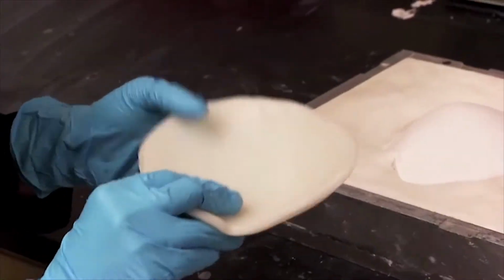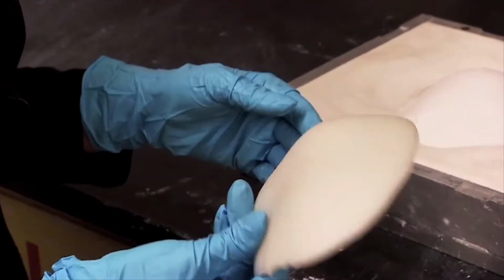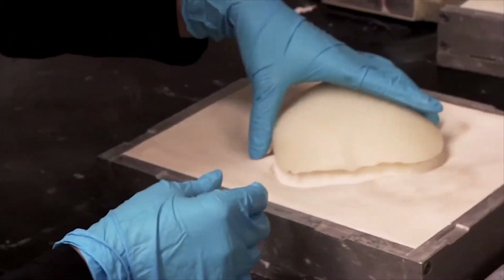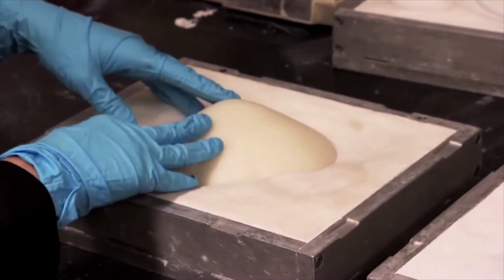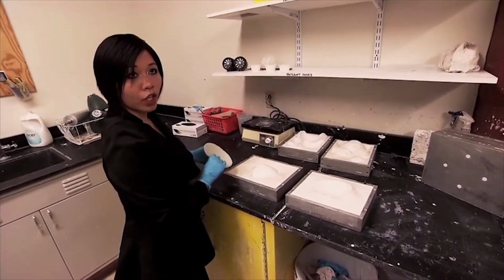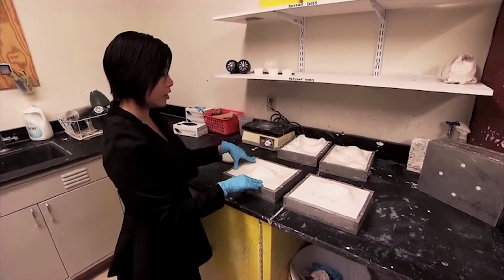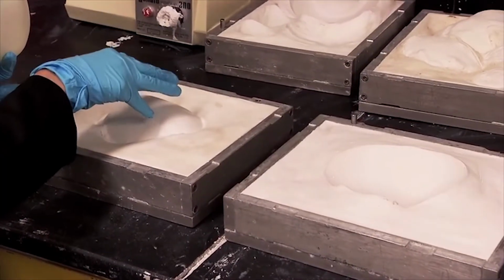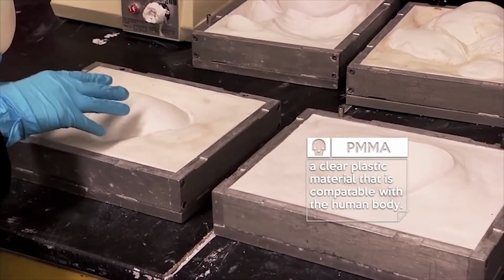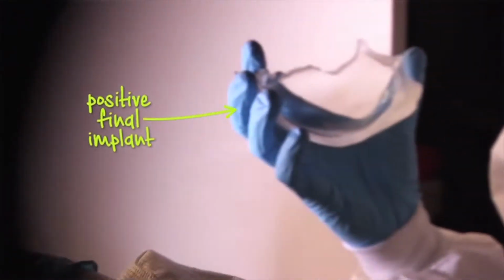So this is what we designed on the digital software. We'll create a negative using this template. And this is a plaster mold. So we do a molding process, and then what we get is a negative impression of the template. And then we'll go ahead and fill this mold with the PMMA material and put it in the oven and heat cure the PMMA so that we get a positive final implant.